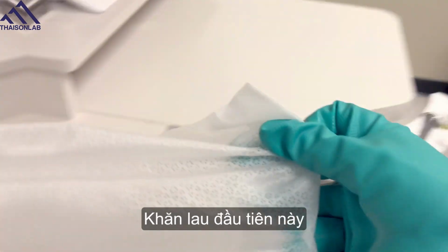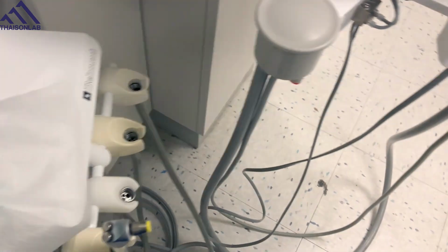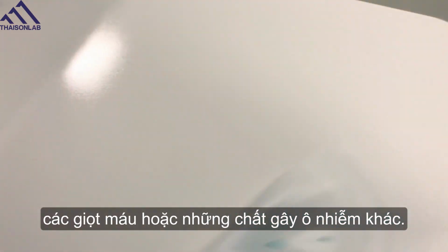This first towelette cleans the surfaces. So this cleaning process removes the bioburden from the surface. It removes the saliva, the filling fragments, the droplets of blood or other contaminants.